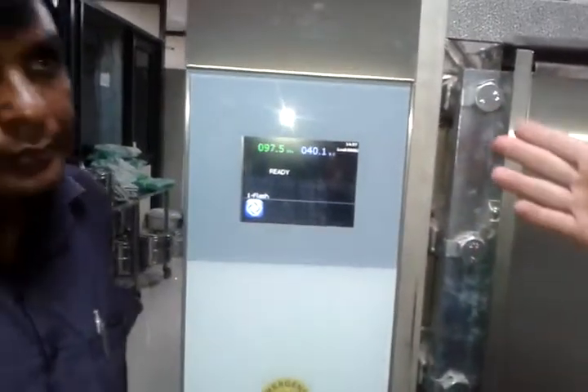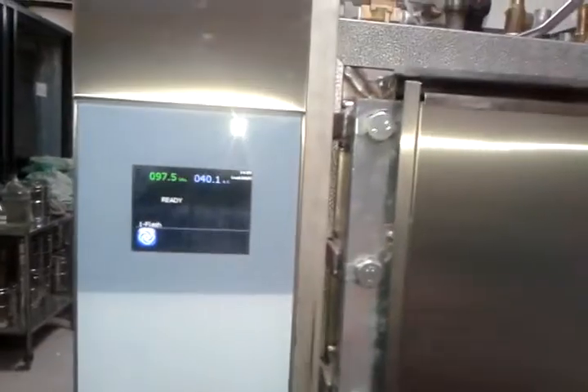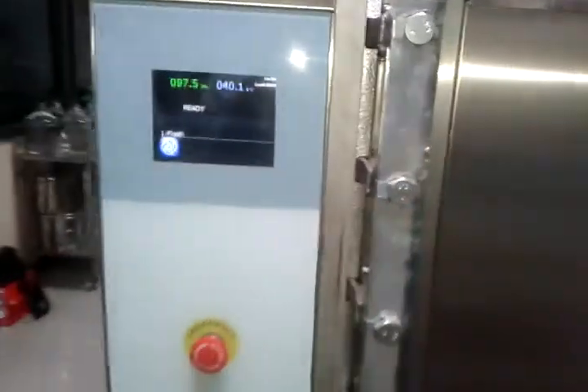On the other side we see the second panel — this is a clear side panel. It's just monitoring what's happening in the software and in the cycle. We have a safety button here so we can stop the cycle and the working as we want.